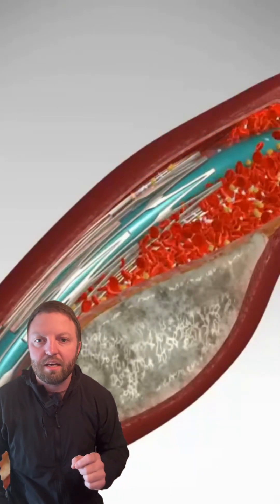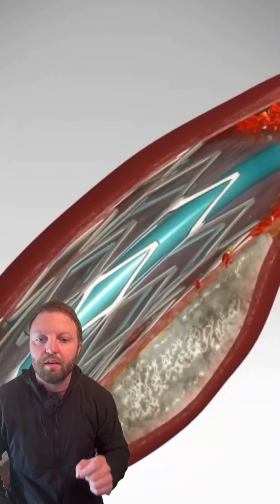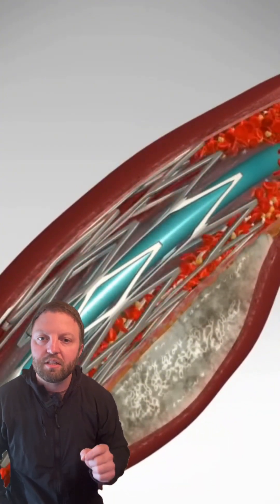But here's that balloon stent catheter. The cardiologist will enter this in, inflate the balloon stent, compressing this metal mesh to the sides of the artery.